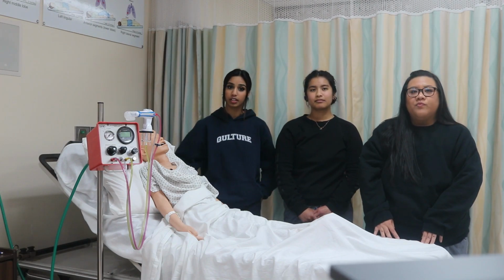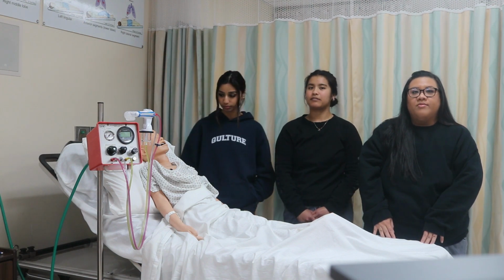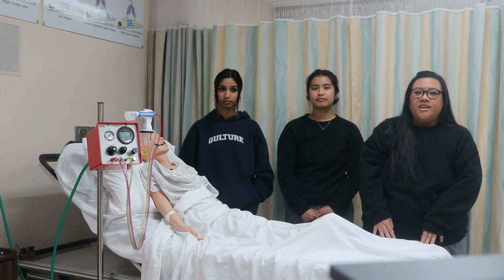I'll be going over the introduction and some indications. I'll be going over the contraindications and how to set up the device. And lastly, I'll go over the initial settings and give you guys a little demo at the end.